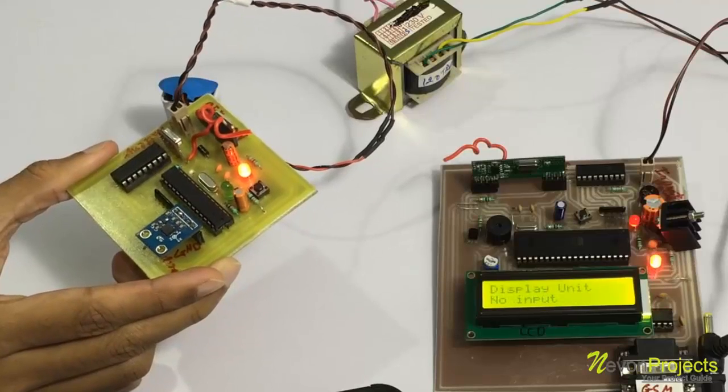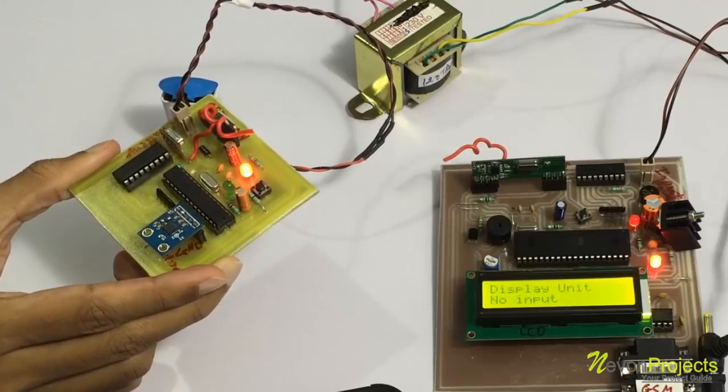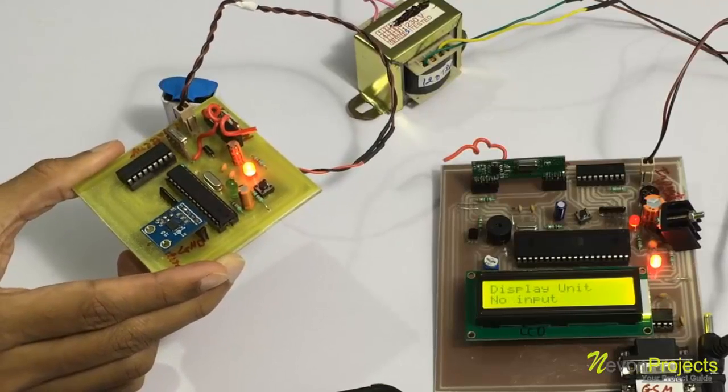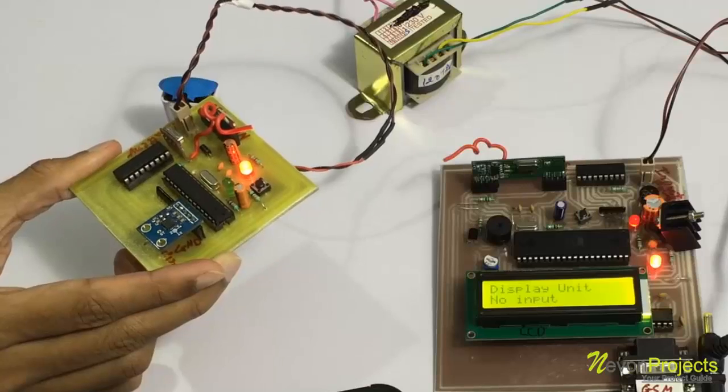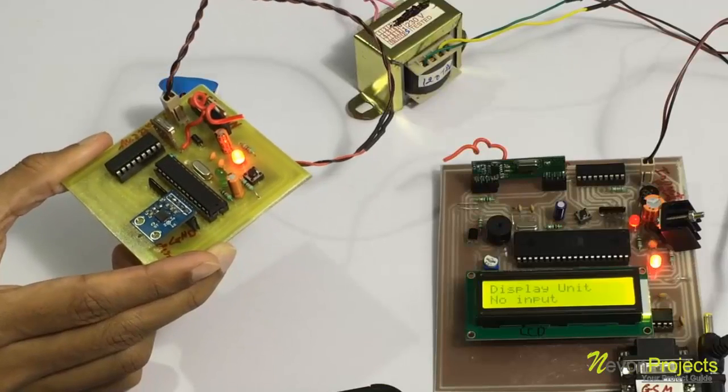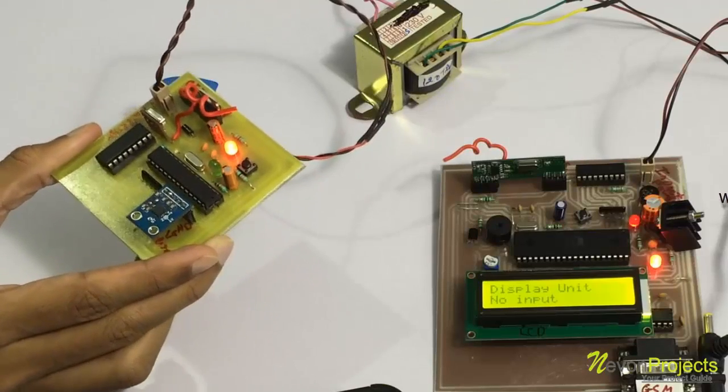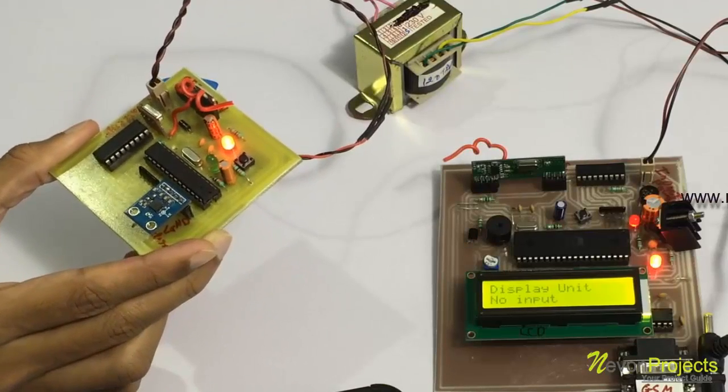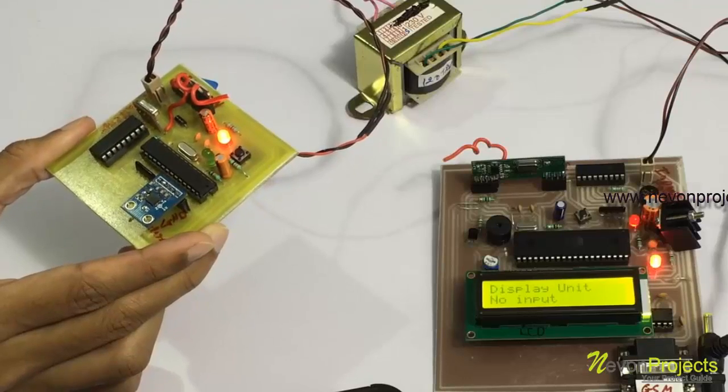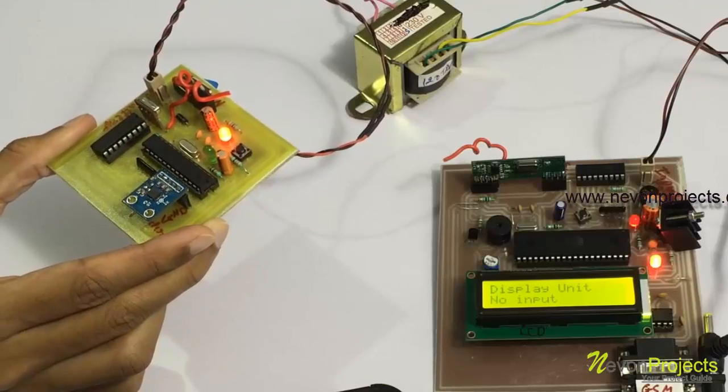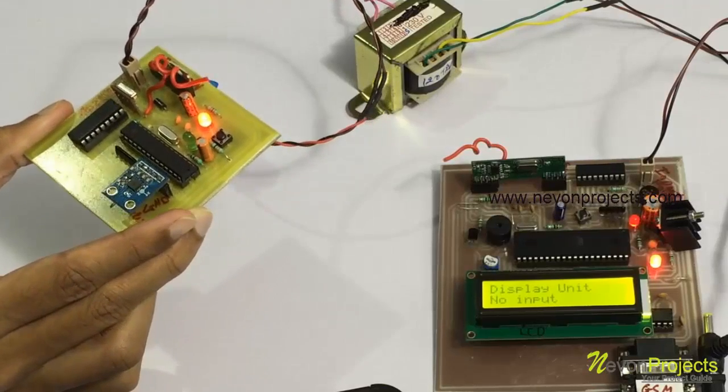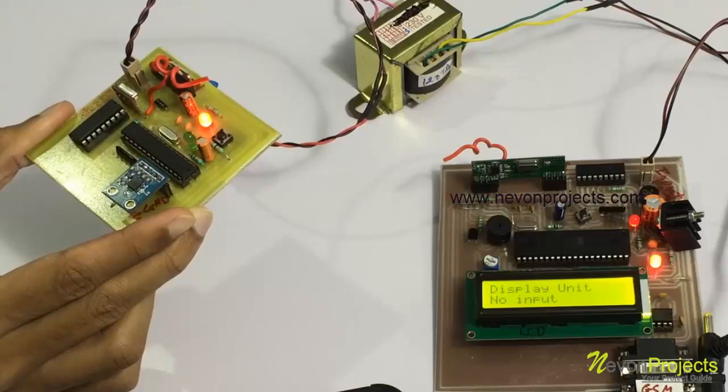For this side, some other problem. As you can see, in all four directions we have different messages configured for the patient to transmit messages here on the display placed outside, so the staff also knows what problem exactly the patient is having.